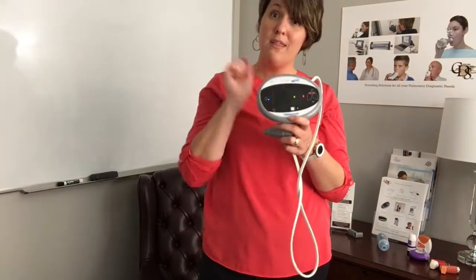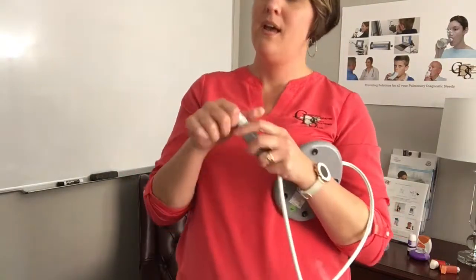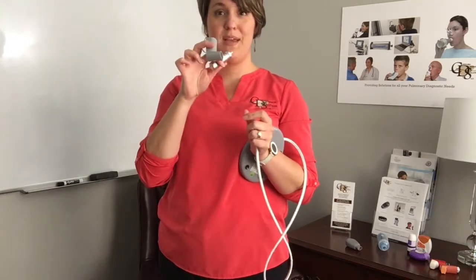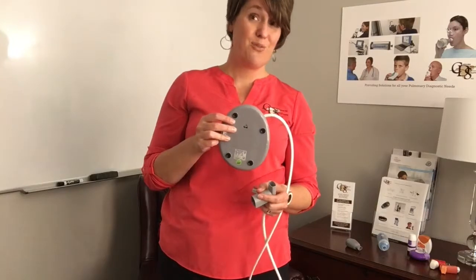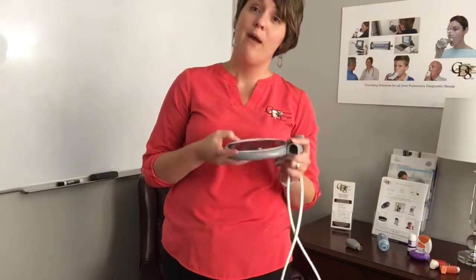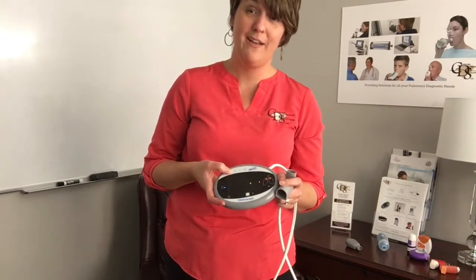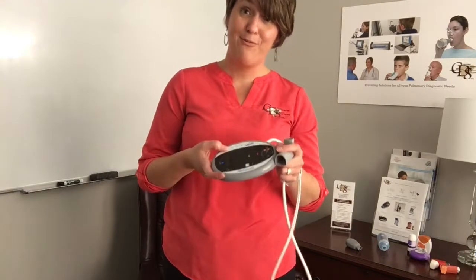This is very important to show your patients. On the PMDI we're utilizing a placebo inhaler, so this can be utilized from patient to patient — multi-use. You just want to clean the tip. The simulators are disposable, and your device runs on AAA batteries, so if it doesn't work, just grab another battery. Very simple and genius design. I would love to share with you some of the articles supporting this device and clinical use — for instance, the study from GINA and the study done by a pharmaceutical group here in South Carolina. Visit us at CarolinaDiagnosticSolutions.com, be sure to message me if you have any questions, and we look forward to talking to you soon.